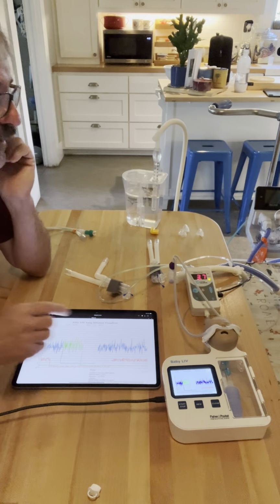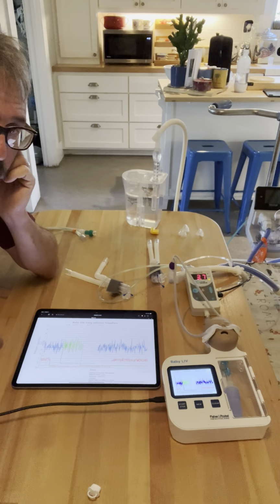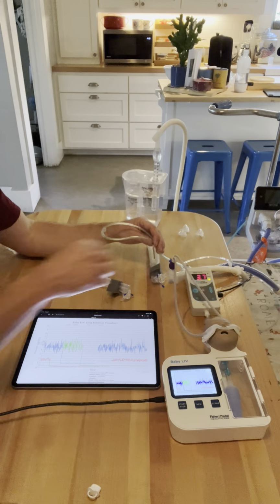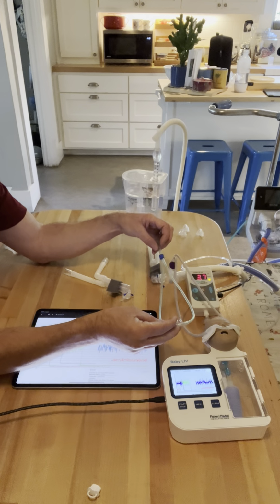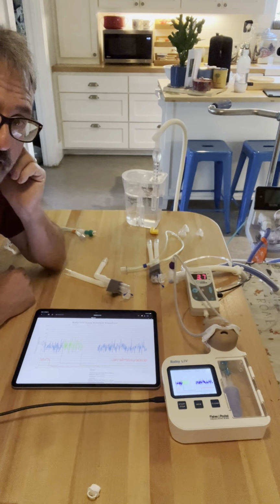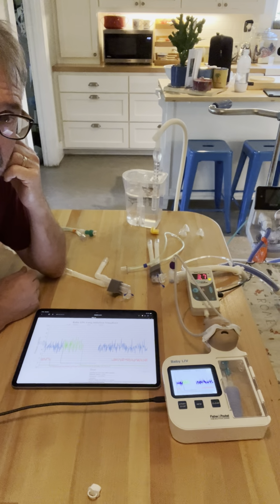Let's go ahead and stop this. My purple cannula no longer is creating a false bubble. Why? The reason is the marketing that RAM will tell you is why RAM works: it has larger bore tubing. I just selected 2 cannulas that are the same size, and it turns out that the purple Optiflow, in theory, has larger bore tubing because it is no longer creating false bubbles.